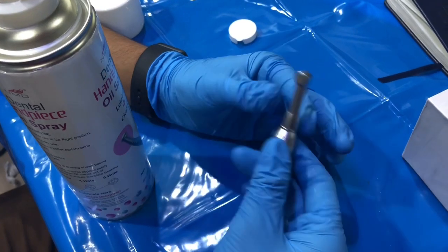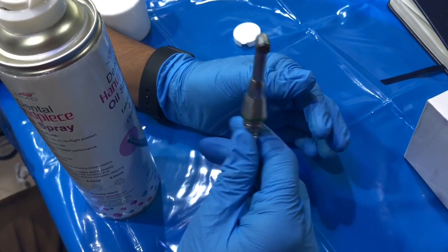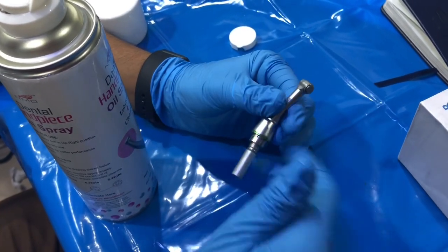This way your endo handpiece is going to work longer. I would recommend lubricating it at least twice a day.